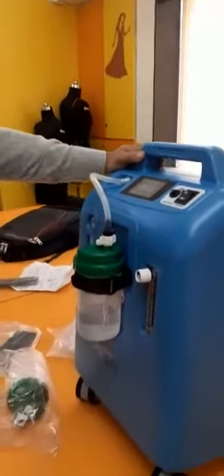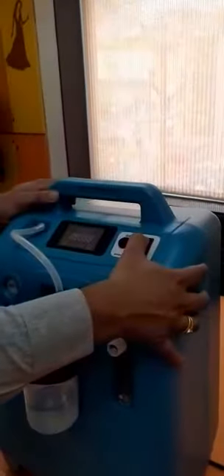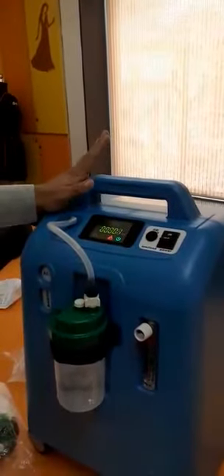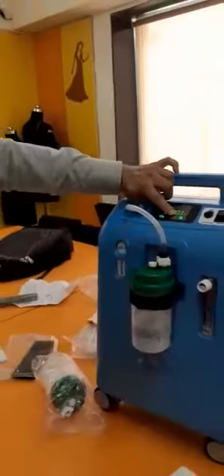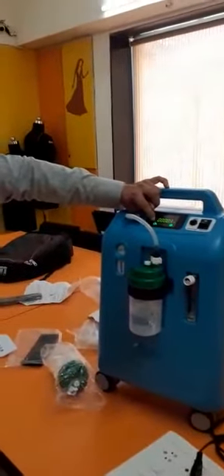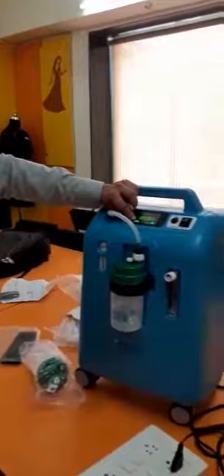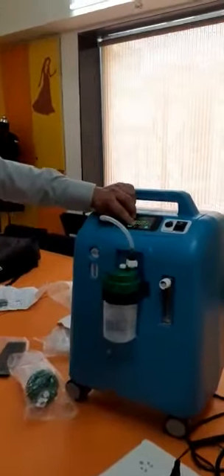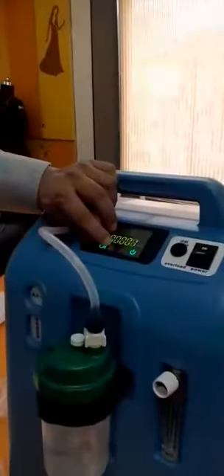Now we will start the machine. The first step is to just press the button and give it some time to start — first there will be a red light, and then it goes to oxygen mode. When this light is on, it means the machine is working perfectly. When the second light comes on as yellow, that means there is something wrong with the machine.